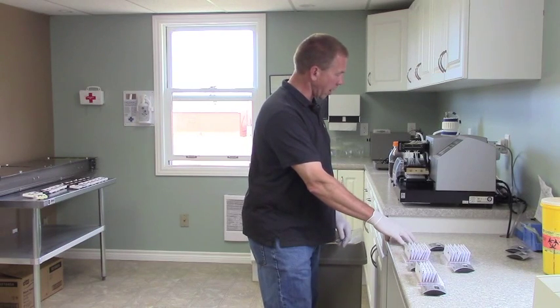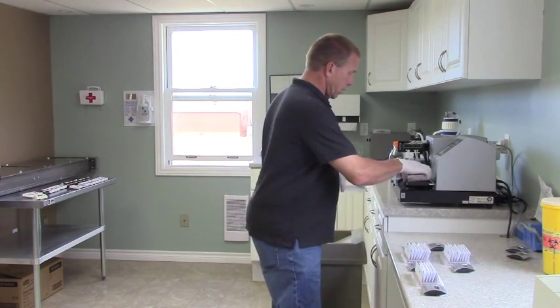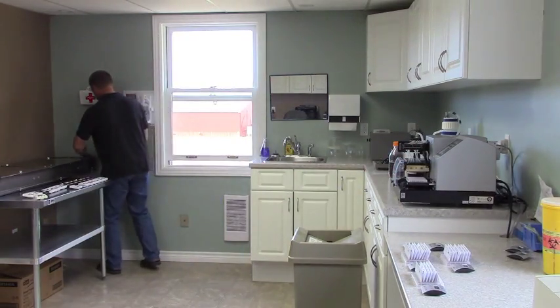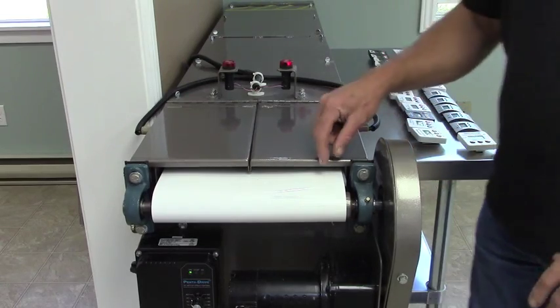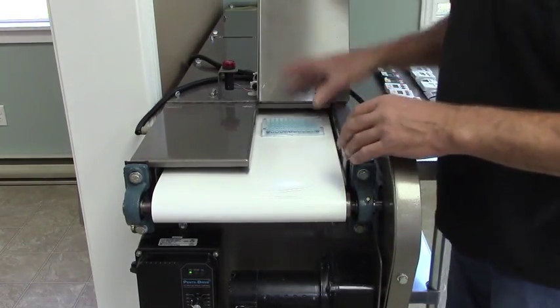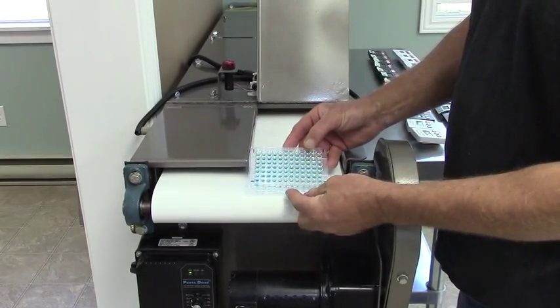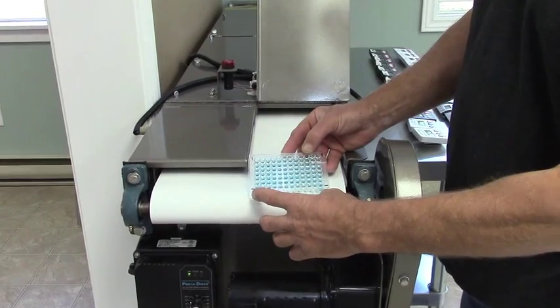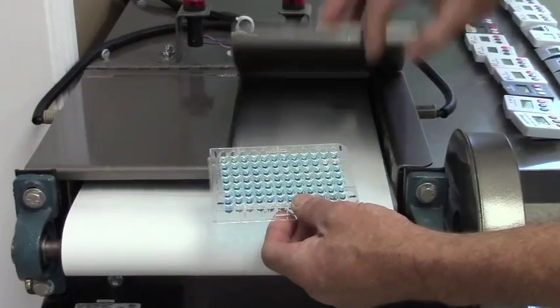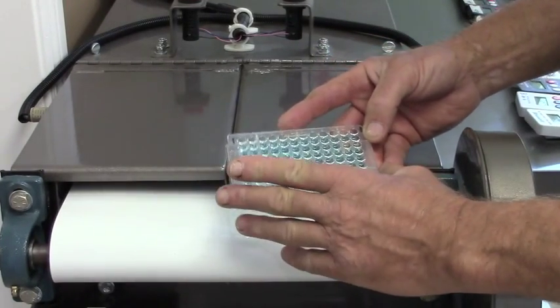We're going to go through three chemical reactions before we're finished. The second one goes on and the first one goes over to be incubated for 30 minutes. When the buzzer goes off after 30 minutes of incubation, it's changed from the clear color we saw before to a blue color. There are two controls here, and the darker the blue is, the more antibodies there have been in this reaction.